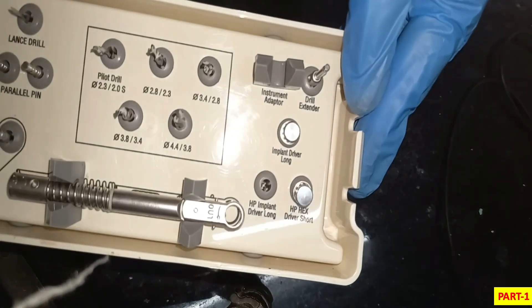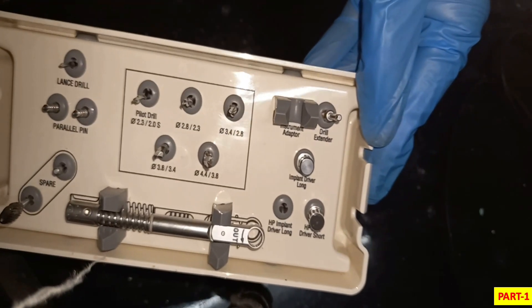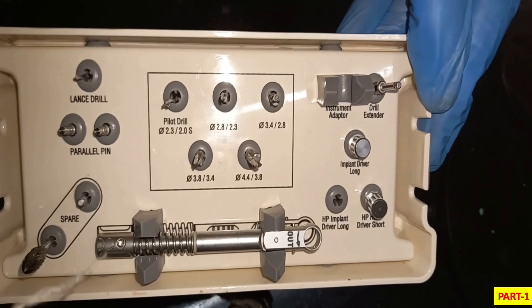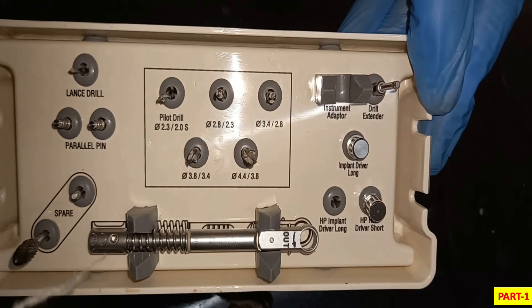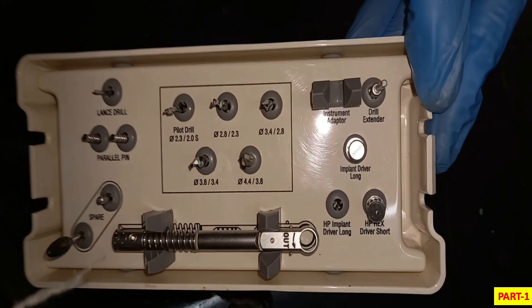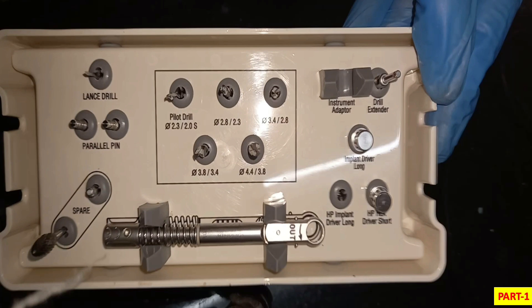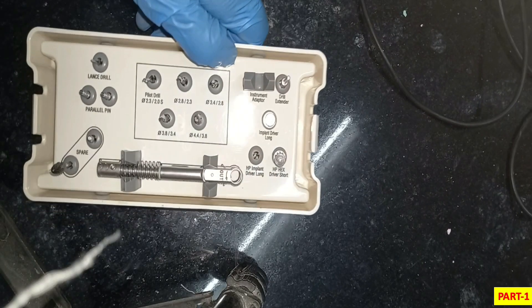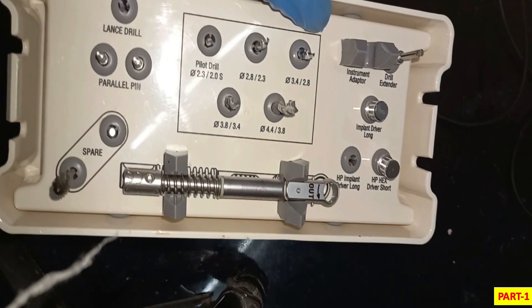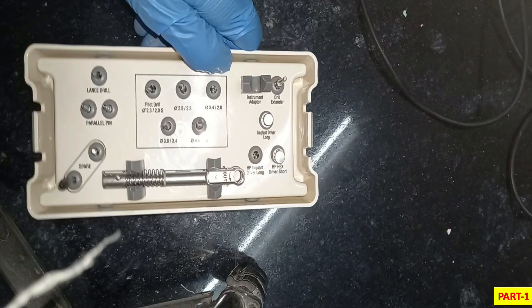So this is an implant prosthetic kit. It contains various components which are used to remove or fasten the implant prosthesis. This kit is used when implanting a fixture in a place where a tooth is missing, or when connecting or detaching a cover screw or other component of the implant. What is a fixture and what are the other components — I'll tell you in detail in a later video.